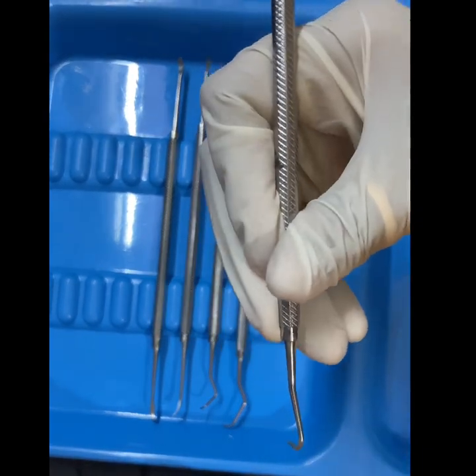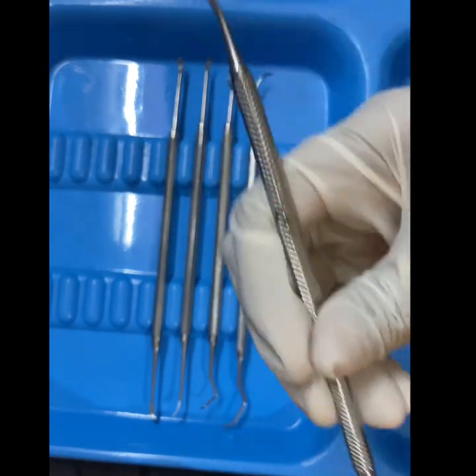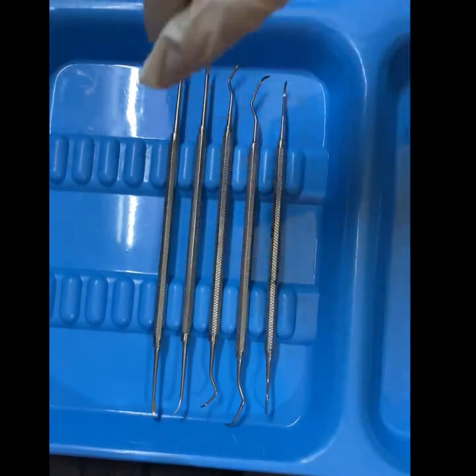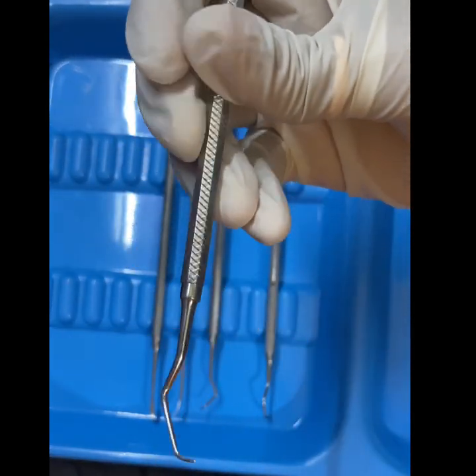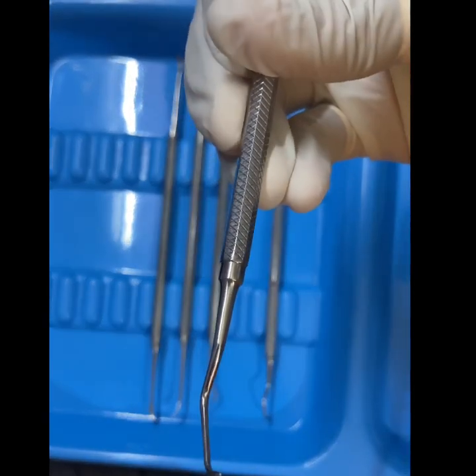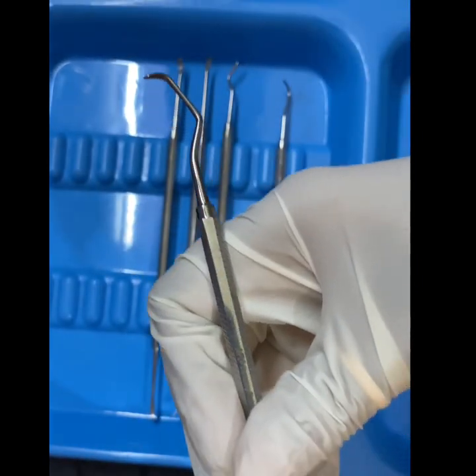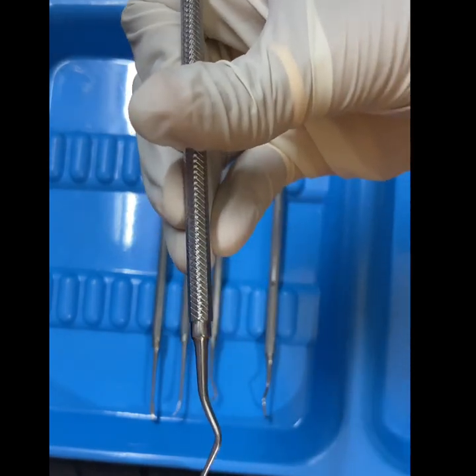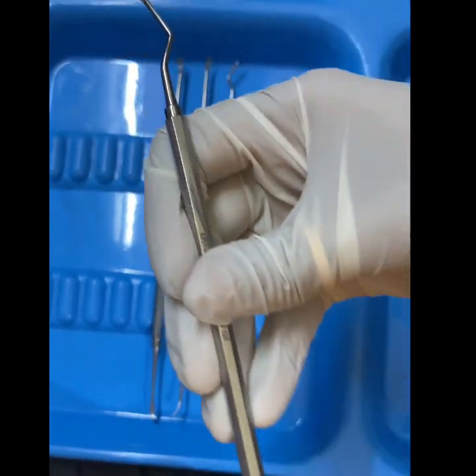The method of using it is the pull stroke. Look at this — the sickle scaler is a double-ended instrument. Now this one is the anterior hatchet, also a supragingival scaling instrument used for the anterior teeth. Look at the blade design to identify it easily.